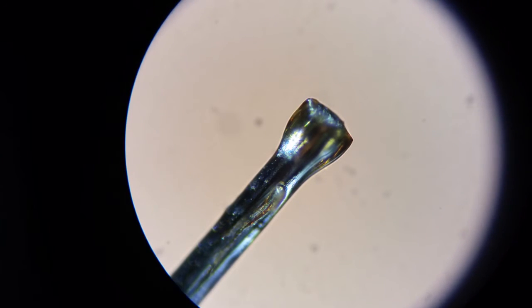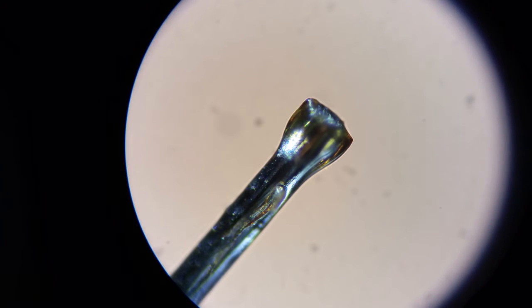All right, so here we have the rear end of the sensor. This is the metallic end that is usually permanently attached into the two black rubber conductive discs that are in the insert portion that you attach to your abdomen or wherever you like to put it.